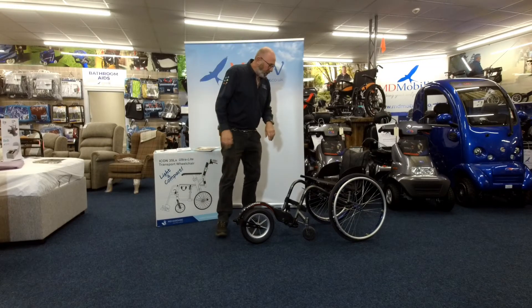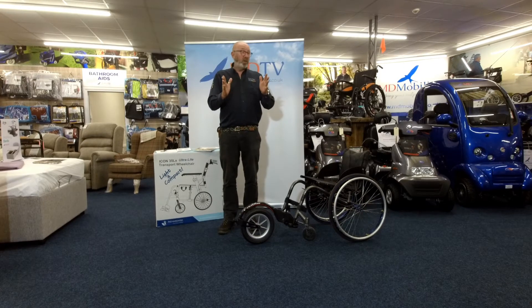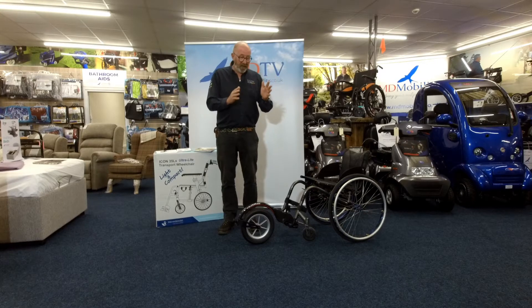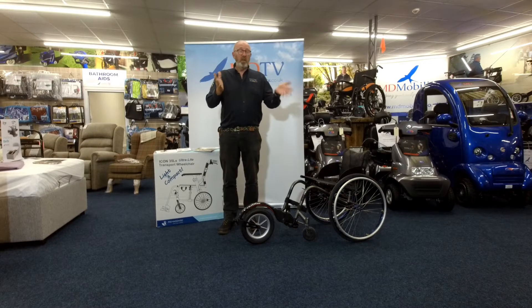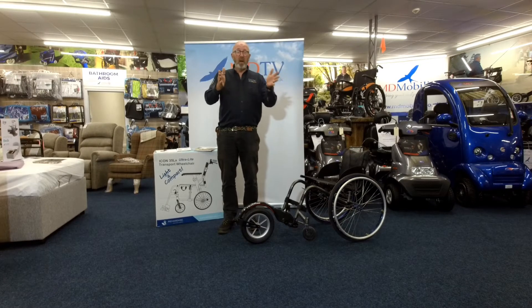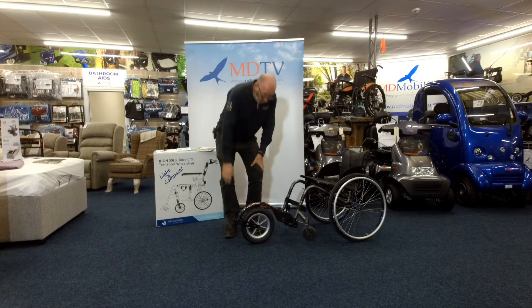Now we're giving the secret away, because if you put a front wheel on it like so, what happens is that you can actually get across much more horrible terrain. You might even be used to going around town, but it's a town where there's a lot of cobbles or rough pavements, or the drop kerbs aren't particularly as they should be.